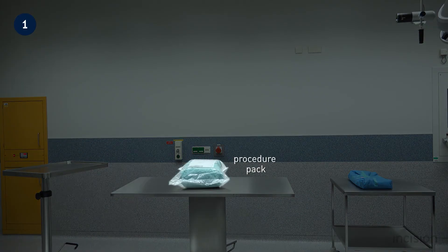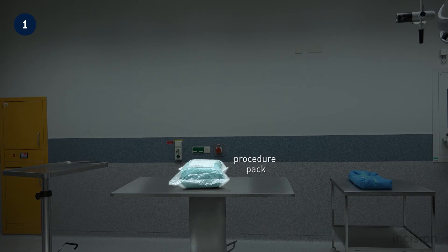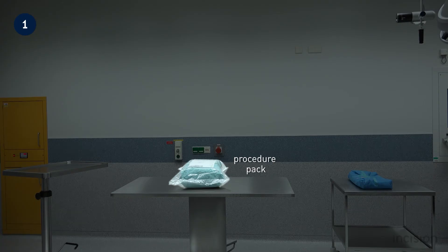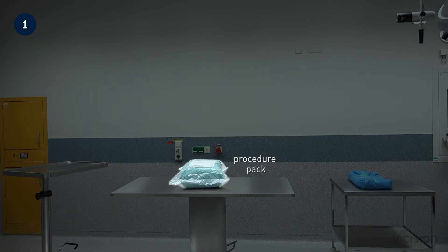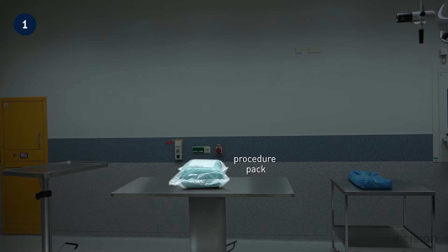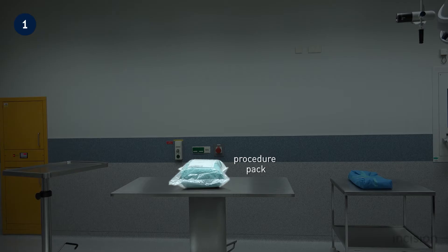Take note of the following: the procedure pack. In this film, a so-called basic pack is used. Contained therein are disposables such as gauze swabs, surgical towels, and suction tubing. The contents of this pack will be discussed in detail later on in this film.